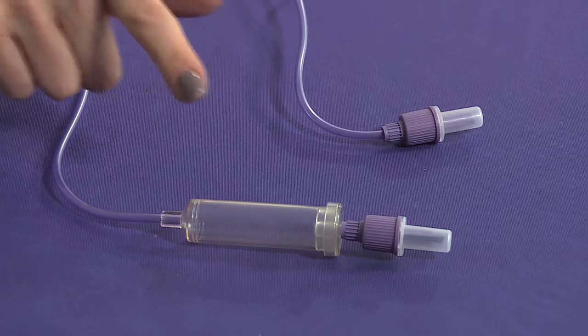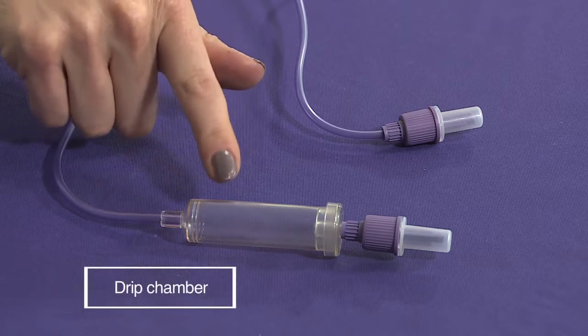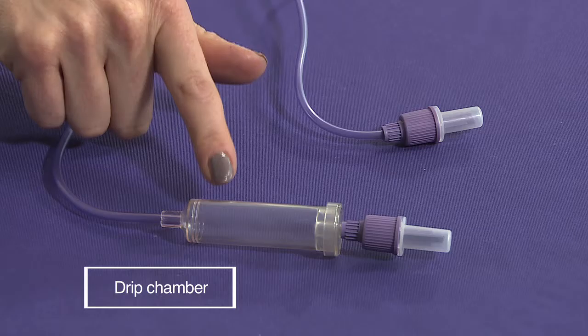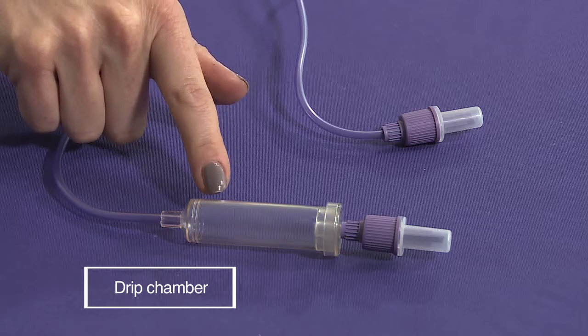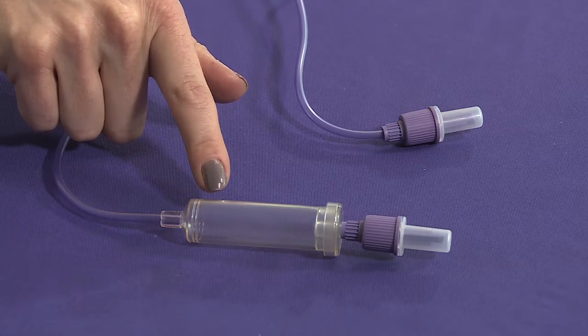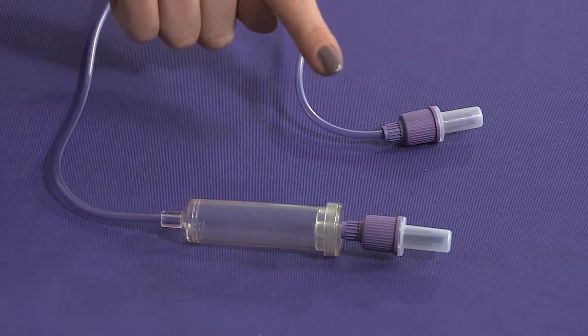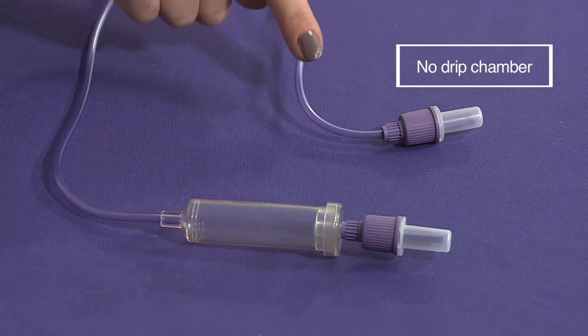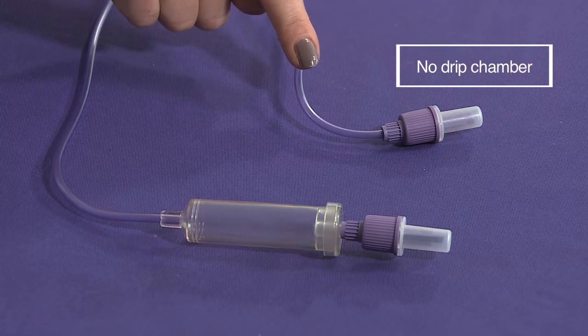The second change I want to show you is the drip chamber. If your giving set currently looks like this, it will now change to the transition giving set, which has no drip chamber.